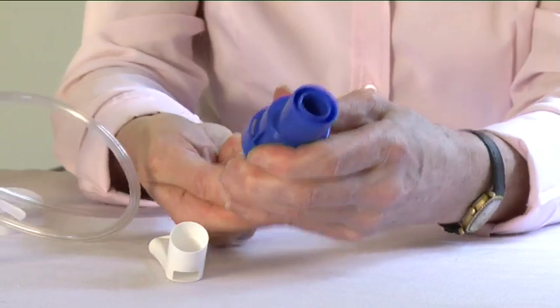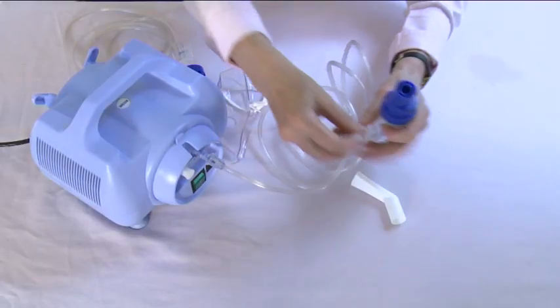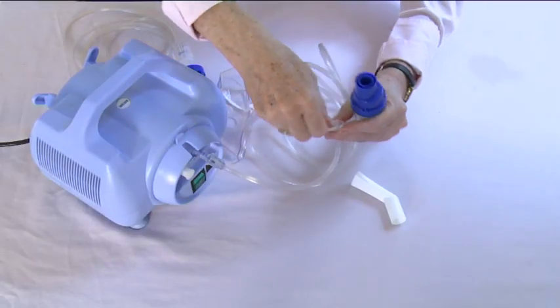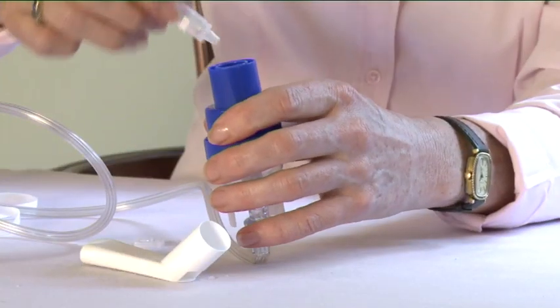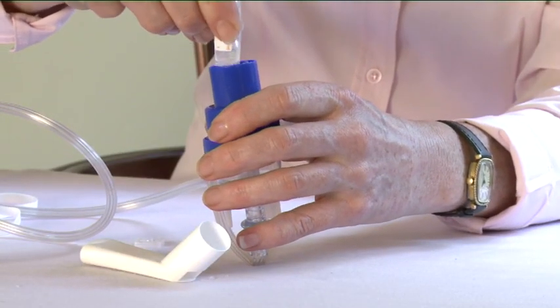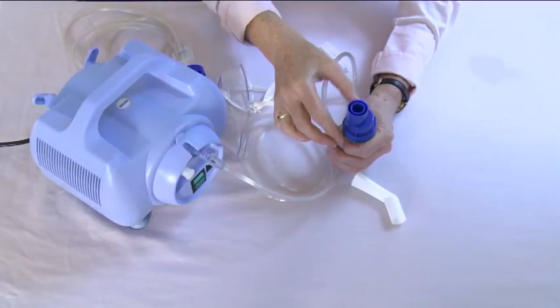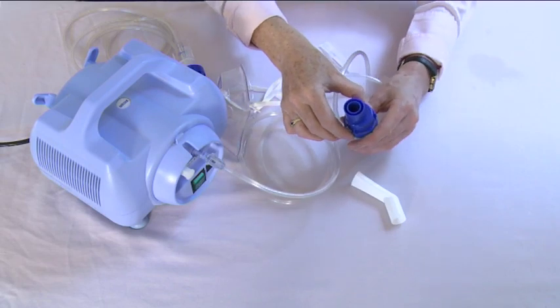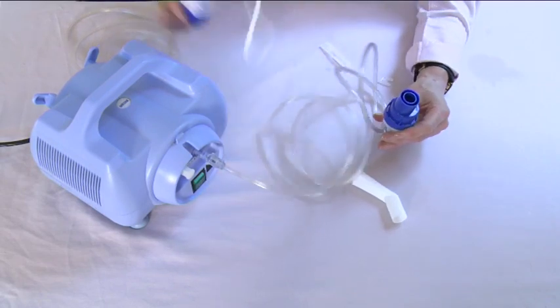Twist the top of the plastic vial and squeeze the contents into the nebuliser chamber. Connect the nebuliser chamber to the mask or mouthpiece.